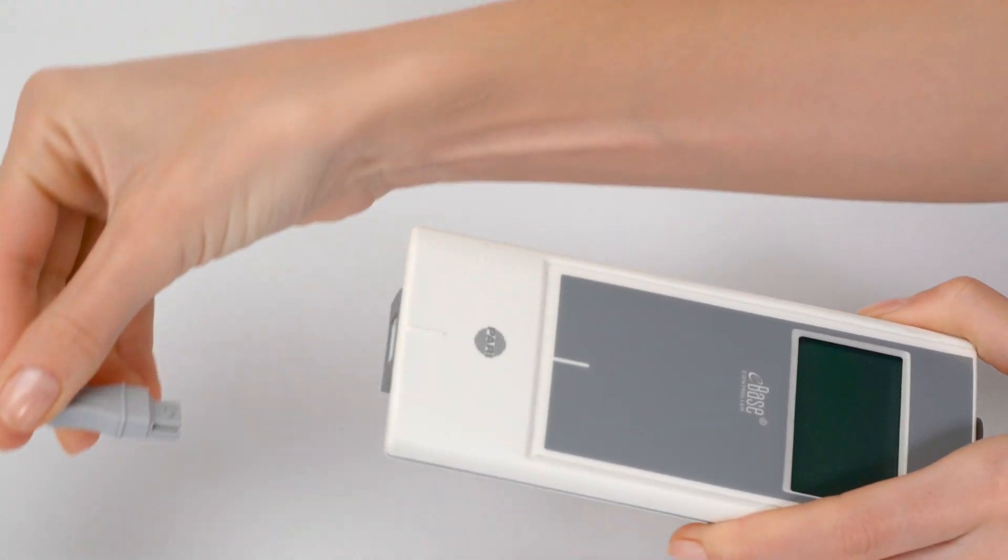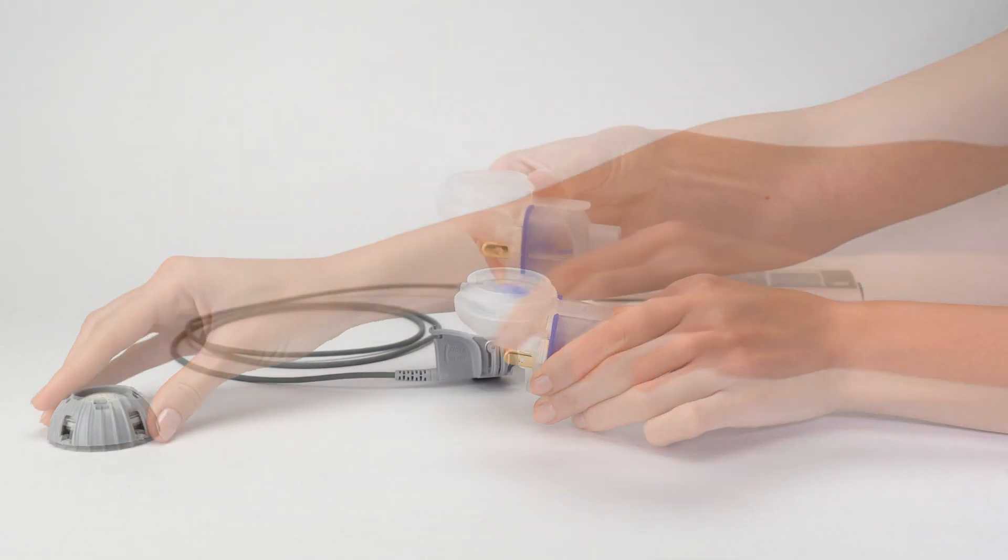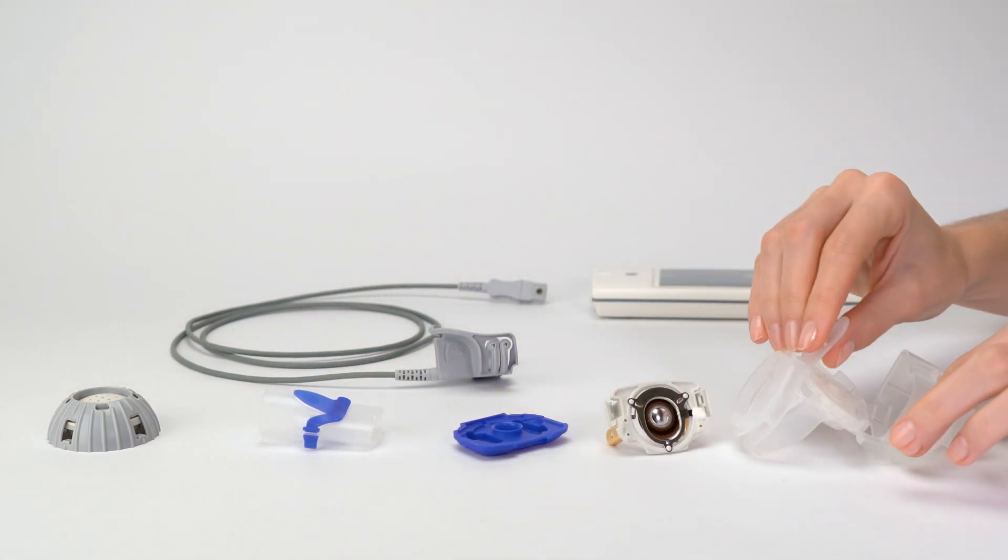Always clean the nebulizer immediately after each use and disinfect once a day. To do this, disassemble the nebulizer into its individual parts.